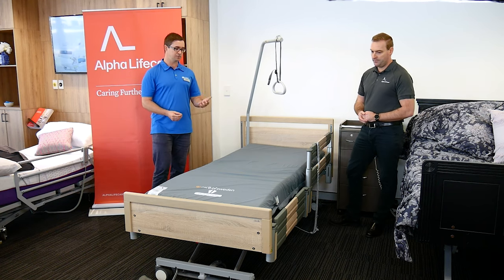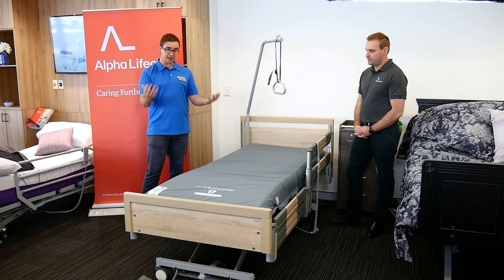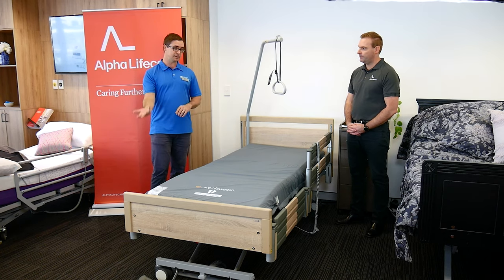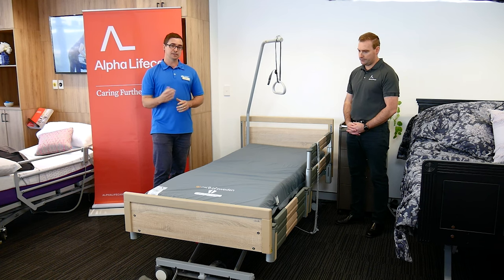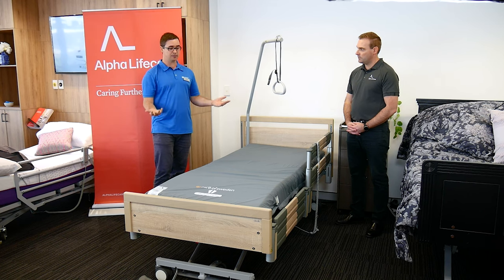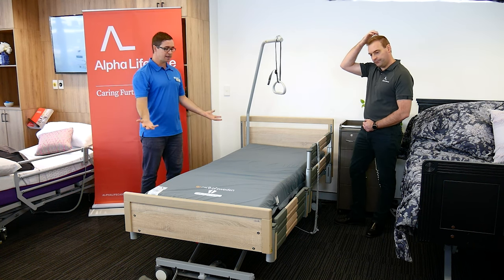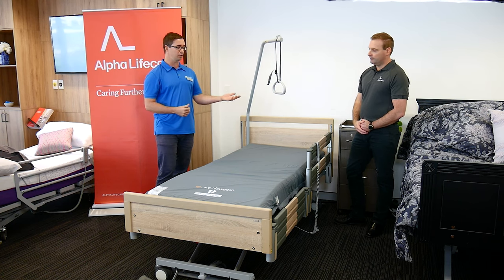There are great options in terms of looking at rails from an occupational therapist and physiotherapist point of view, with considerations in the disability and aged care sector — against NDIS practice standards or aged care quality standards around rails, sometimes right-to-take-risk forms, and sometimes around restraints as well. A bed rail can be a really great piece of assistive technology to help people with repositioning in bed, turning, transfers, and sit-to-stand. A lot of falls can occur in and around the bed, the bedroom, and also the bathroom, so getting the right bed and understanding how somebody transfers in and out is really important for minimising falls.